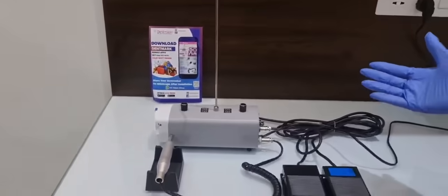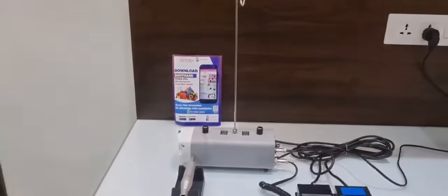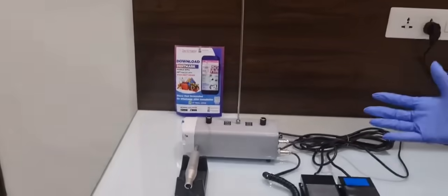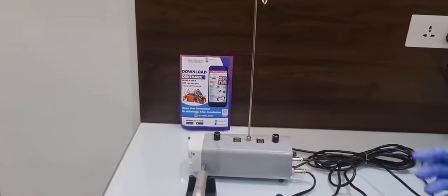This is available on our site www.dentmark.com. You can even download our mobile application, Dentmark, for this product and many other products. Let's go ahead and see the different parts of the surgical brushless E-type motor.